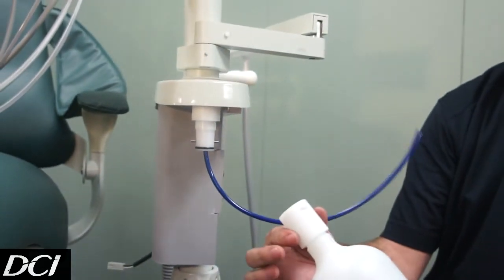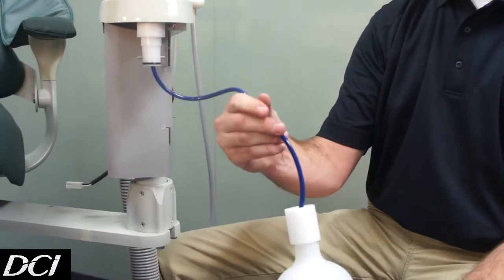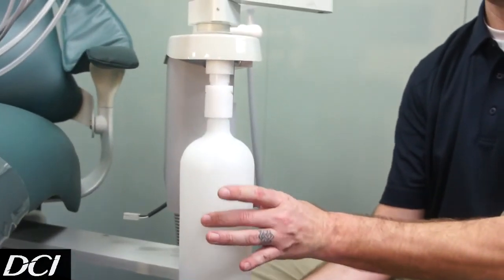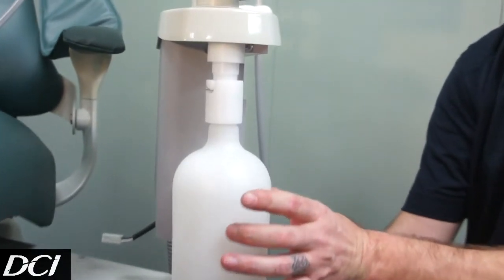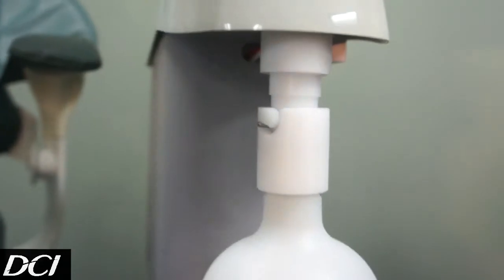And it's on. At that point, our bottle is ready. We can go inside, slide up into place, and instead of having that four or five turns, it's just a quick lock in — there's no collar needed.